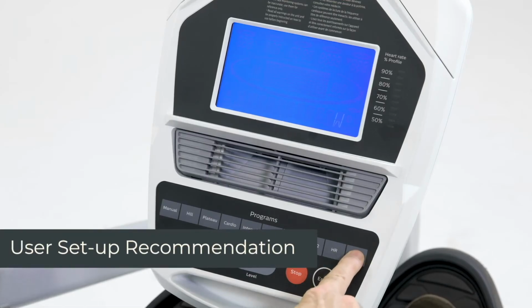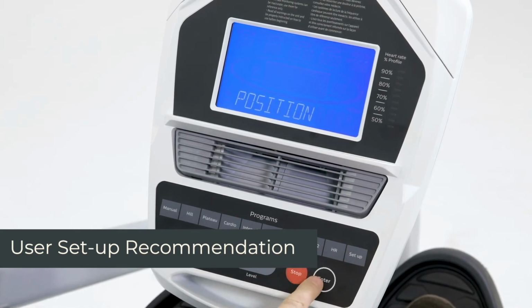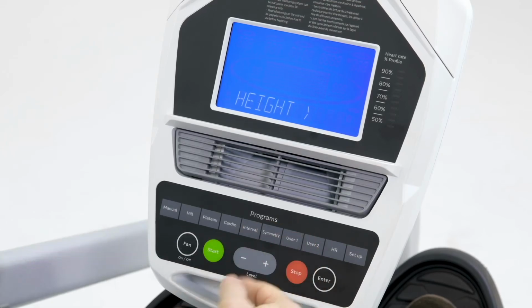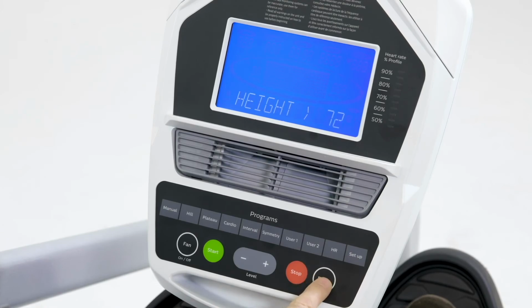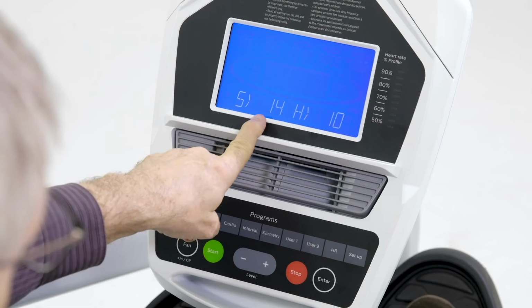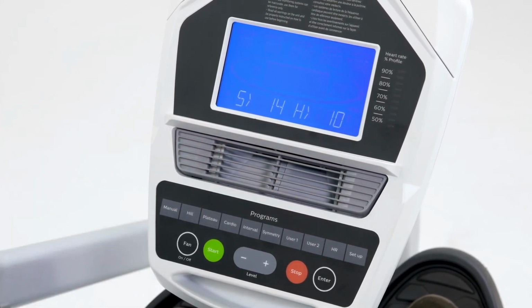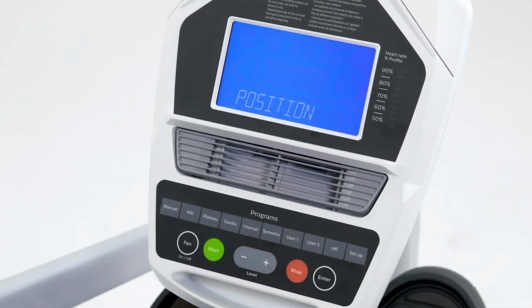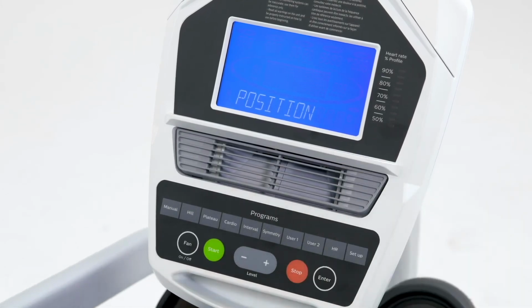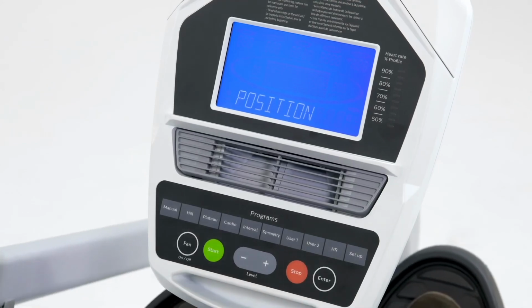The setup feature on the machine allows you to set the seat position. You enter the user's height. In this case, it's in inches. I am 72 inches, so we'll leave it there. I press enter, and this is going to give me a seat position, 14, which I'm at, and the handlebar position of 10. And that basically will set the patient up to the proper position so they're not hitting the bottom of the stroke, and the handles and the feet are in the correct positioning.